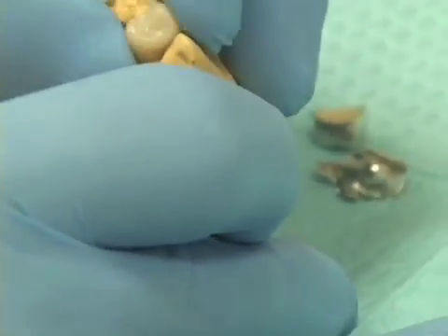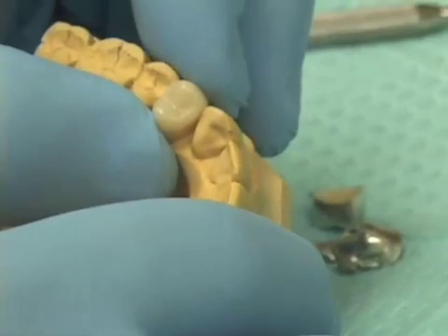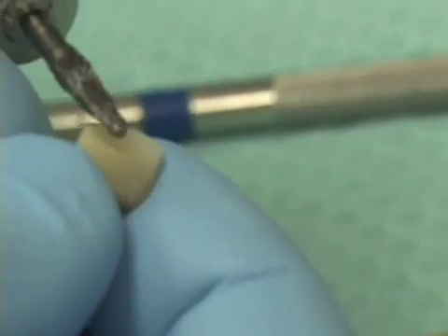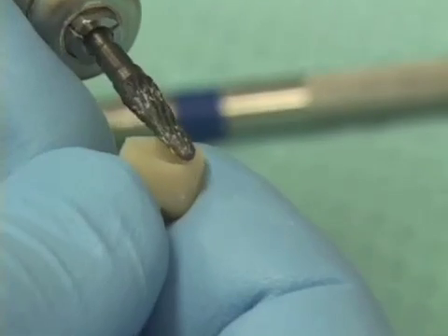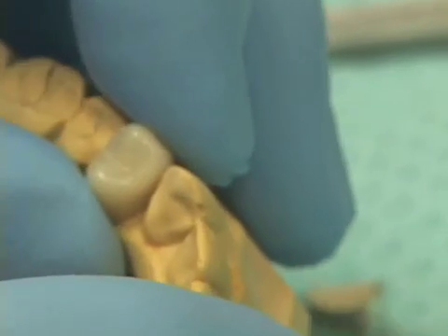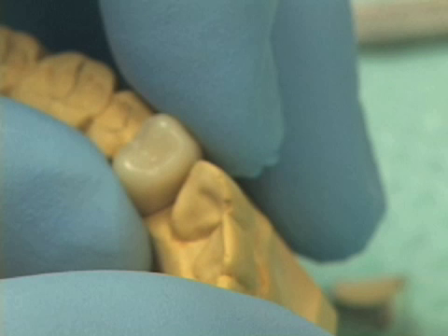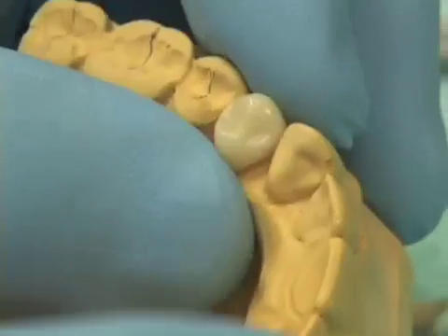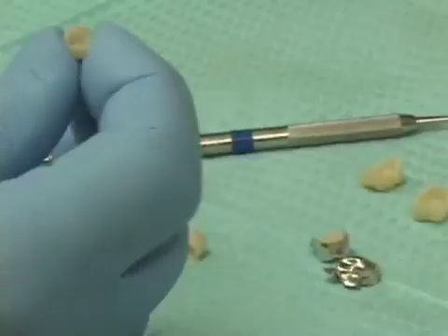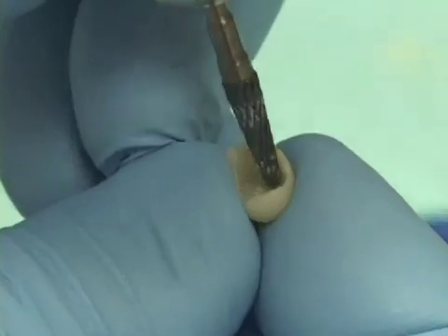If I have my study model — the model before the implants were ever done — I can place this solid plastic tooth in position and adjust the contacts if necessary. Then I turn it over, take my acrylic burr and contour the underside, contour the cervical aspect, until this solid plastic tooth fits the crest of the ridge very nicely and does a good job of being even with the marginal ridges on either side. The next step, for both molars and bicuspids, is to take an acrylic burr and hollow out the inside of the plastic tooth.